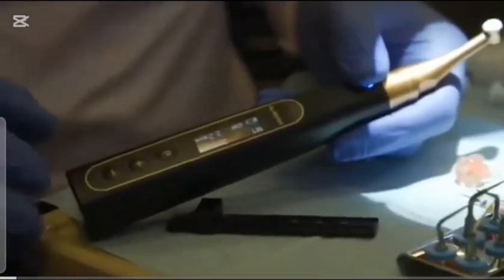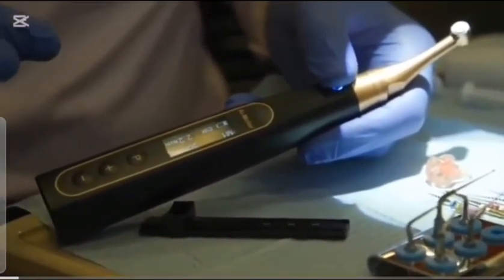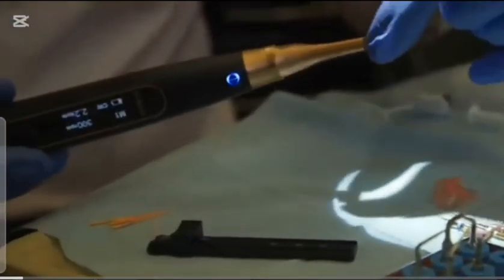So this is the AI motor. And the reason I like this motor is that it's open source. So it's like you can use any file system on this. So it's not locked to any particular systems. I really like that it's got a small head.